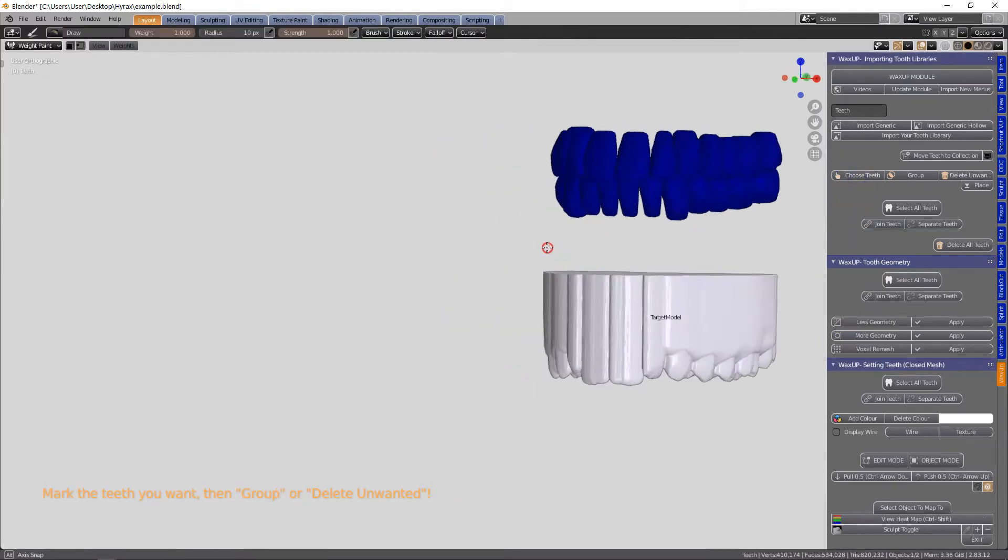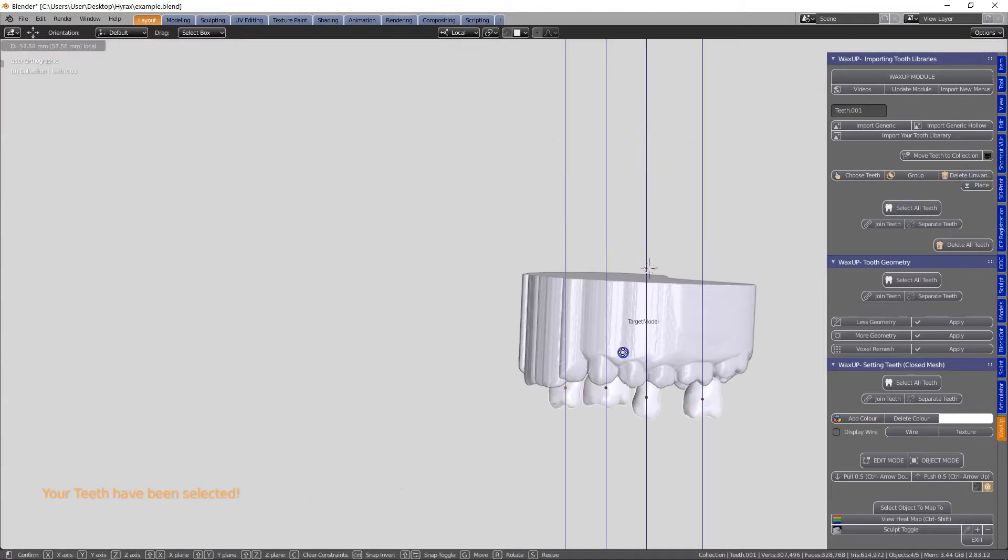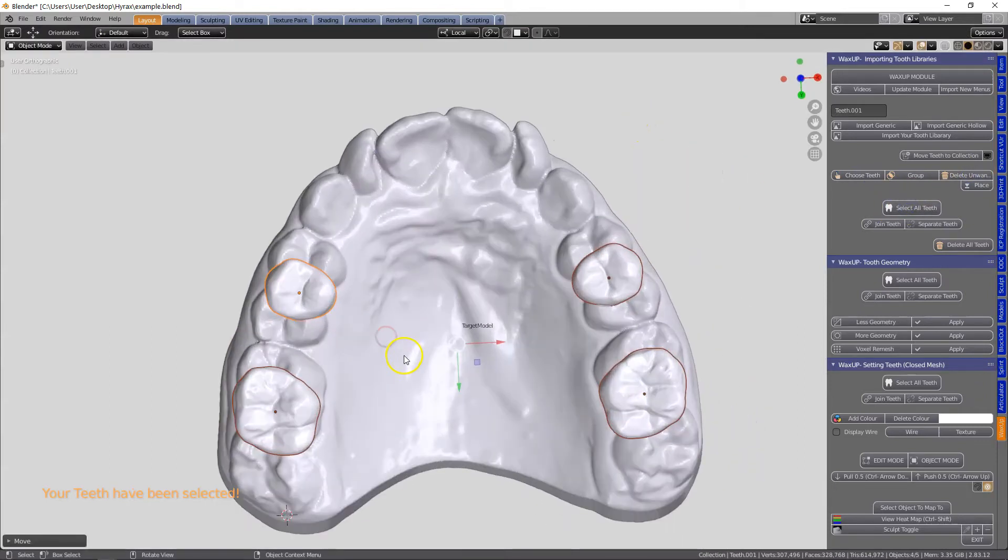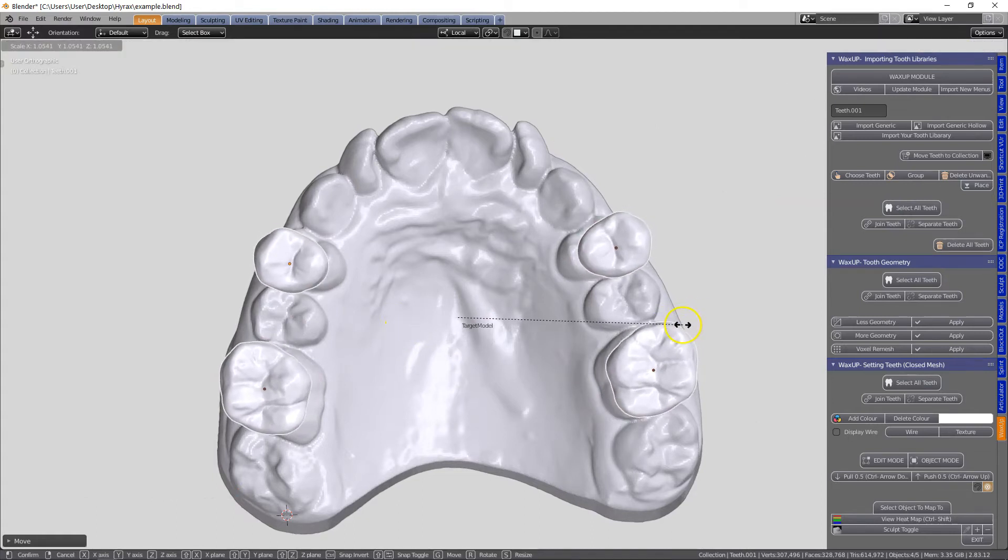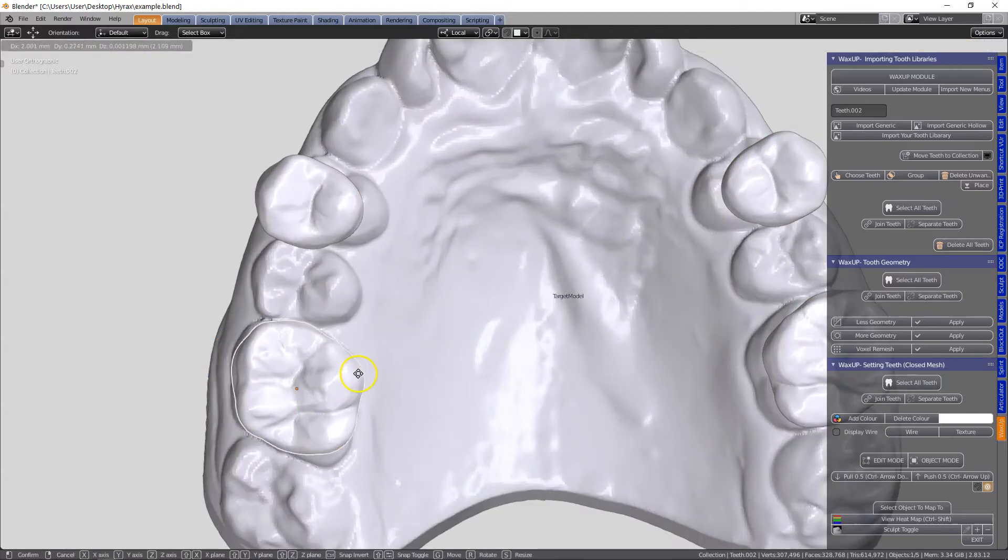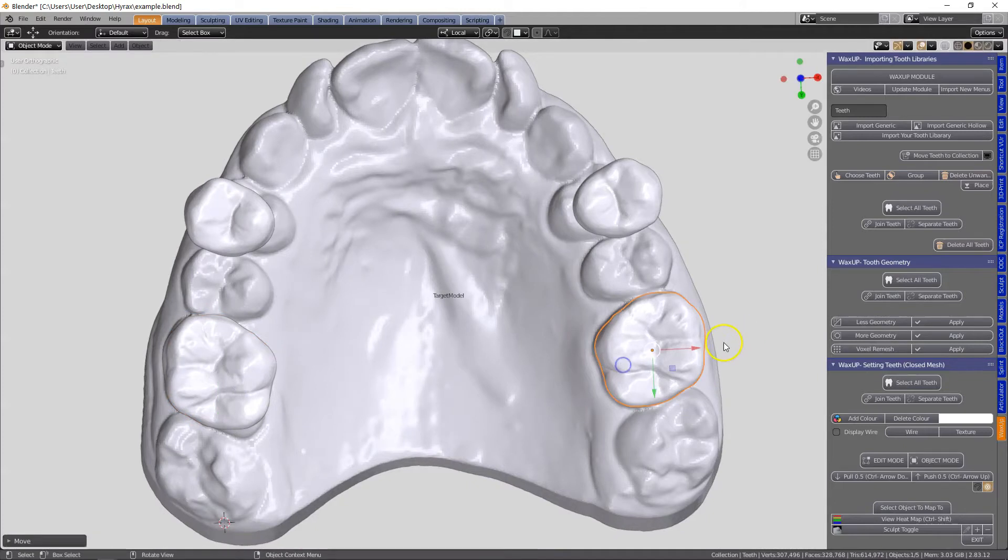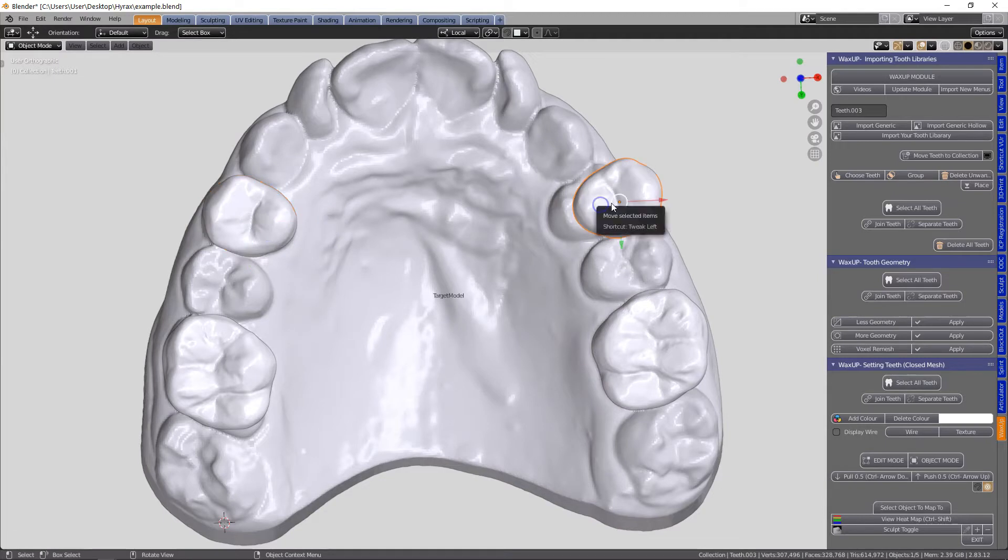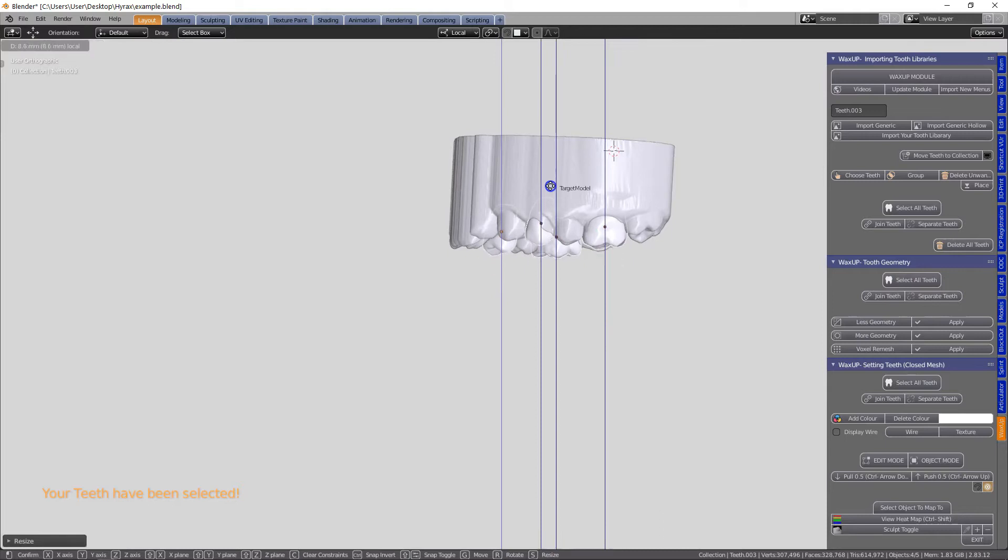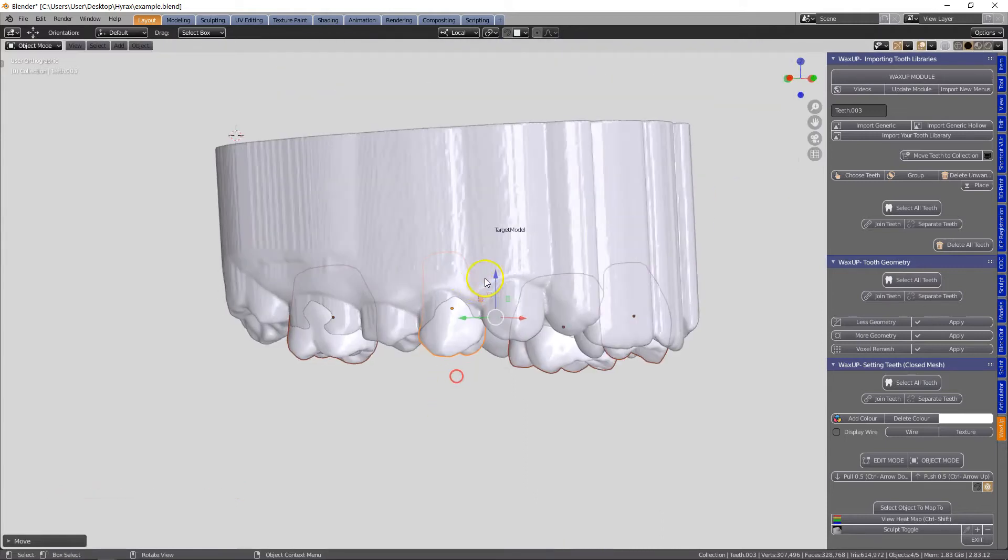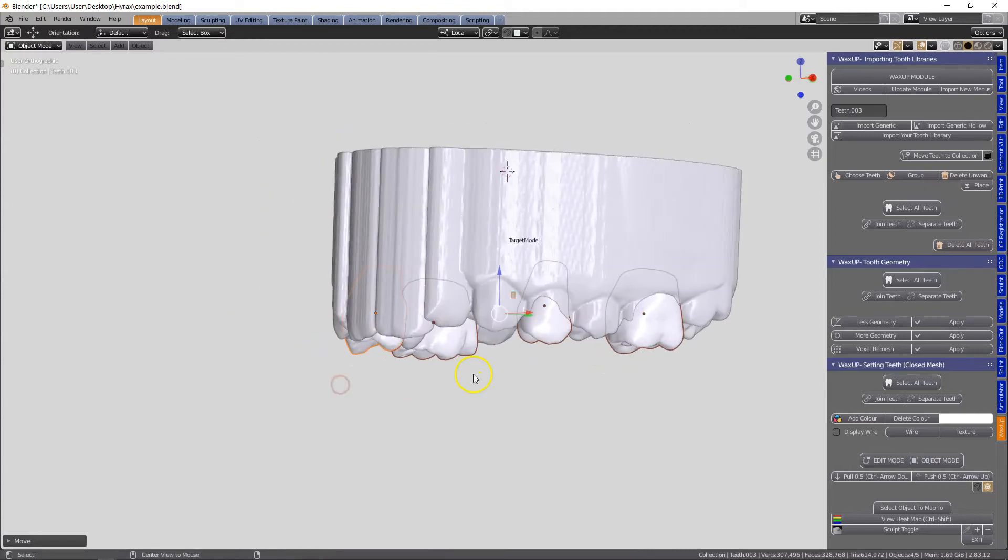But for this video I've been asked to make to use teeth to go over the top. So in the wax up module I'm choosing the teeth that I need and then I'm going to be moving them into position and scaling them. Remember these have to be scaled a little bit larger so that we have sufficient thickness for printing. This is something to keep in mind and we'll see that later on one side they've been a little bit thin, so a lot of attention has to be placed on the thickness of these.